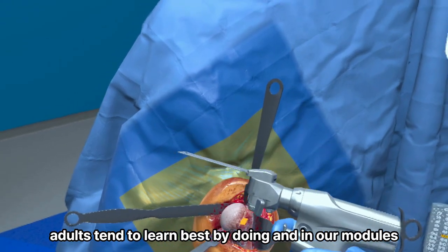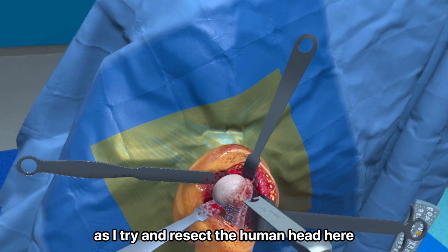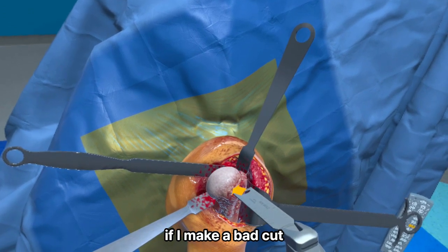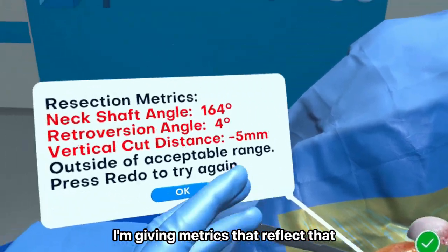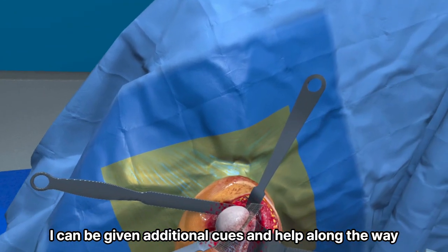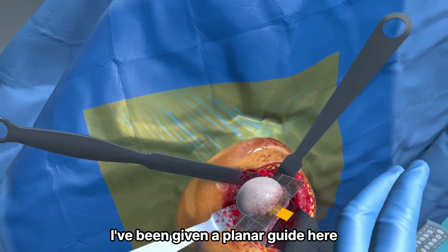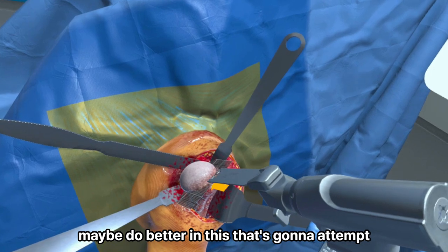Adults tend to learn best by doing, and in our modules we try and enforce that. As I try and resect the humeral head here, if I make a bad cut, I'm given metrics that reflect that. On my subsequent attempt, I can be given additional cues and help along the way. You can see I've been given a planar guide here that's going to guide my resection so that I can maybe do better in the subsequent attempt.